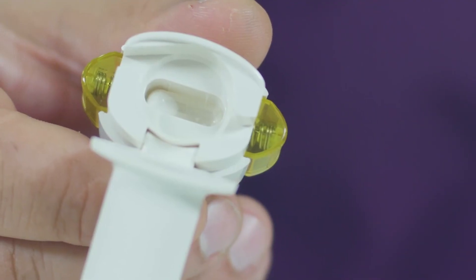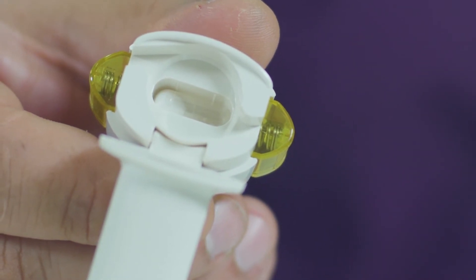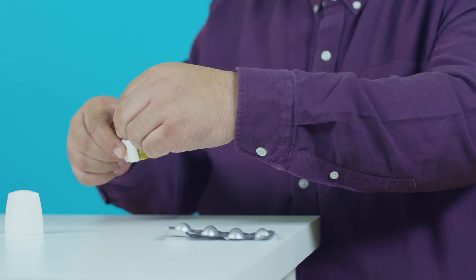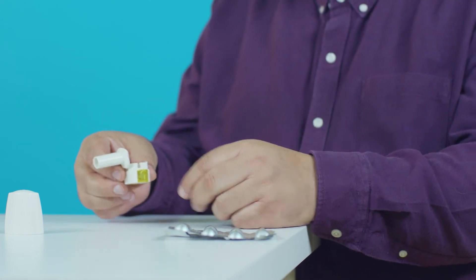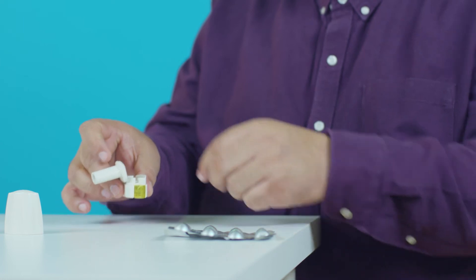If you can't hear the vibrating noise when you breathe in, the capsule may be stuck in the inner capsule chamber. Open the inhaler by pushing the mouthpiece back and loosen the capsule by gently tapping the base of the inhaler. Close the mouthpiece and follow the steps again, starting by breathing out slowly and gently.